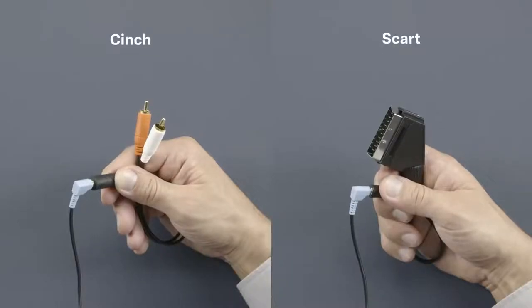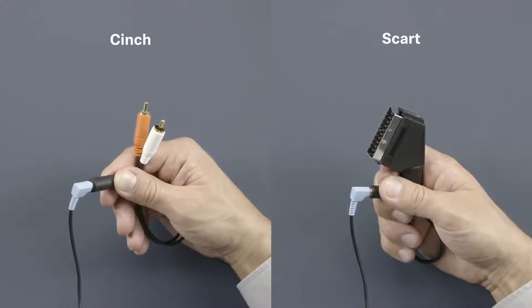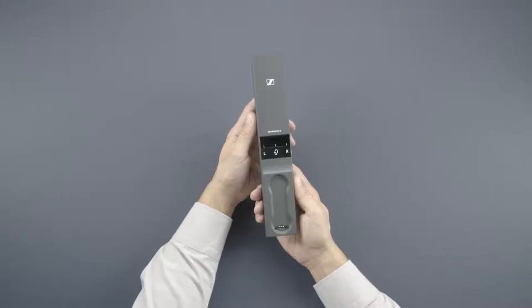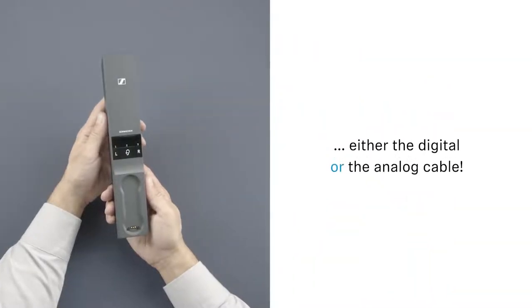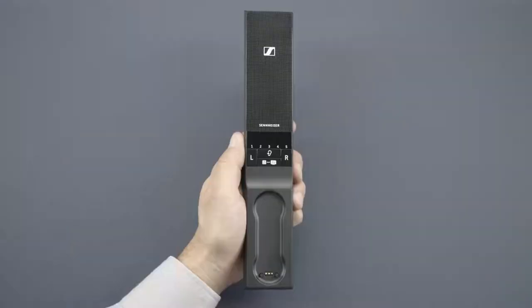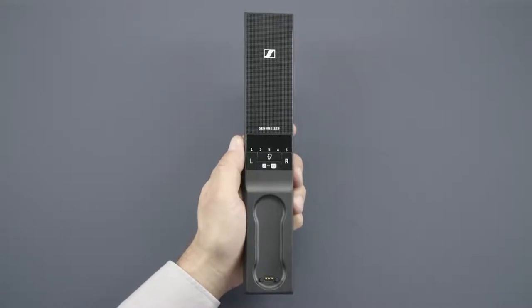Connect your set over RCA or SCART and your TV's loudspeakers will remain working. With the Set 860, please connect either the digital or the analog cable. With the 880, you can connect both at the same time.